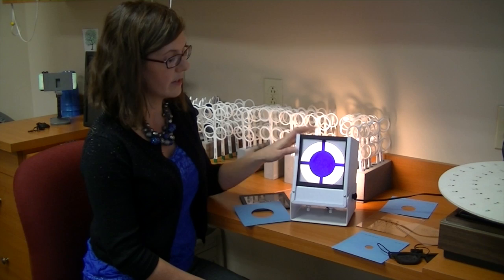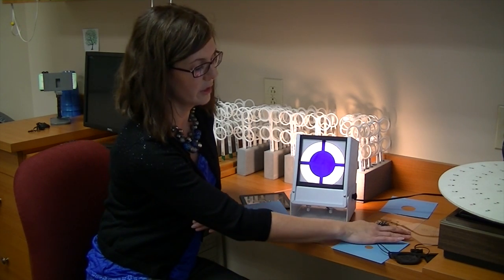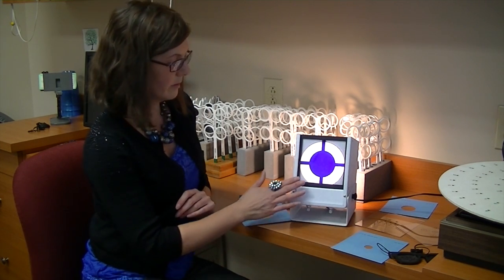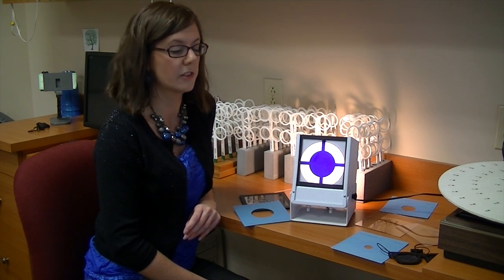This particular instrument has a lot of different components that we can utilize with it and ways that we can modify it for individuals to be able to do the activity.